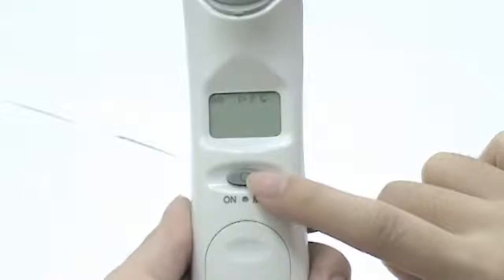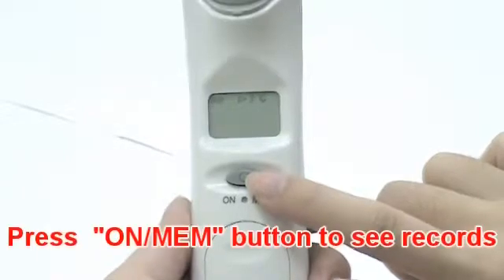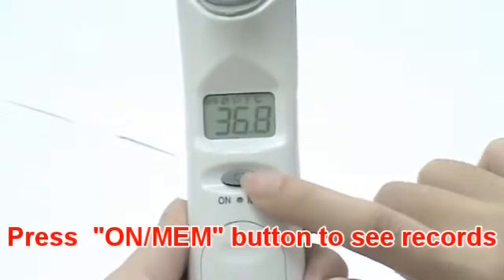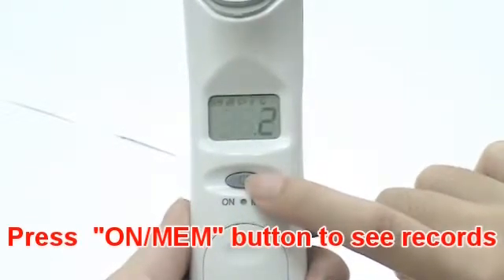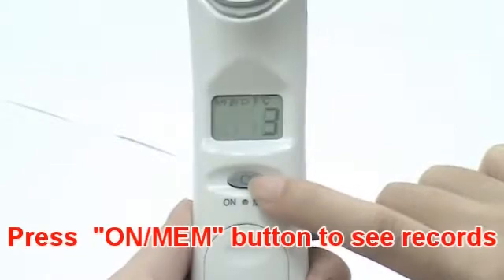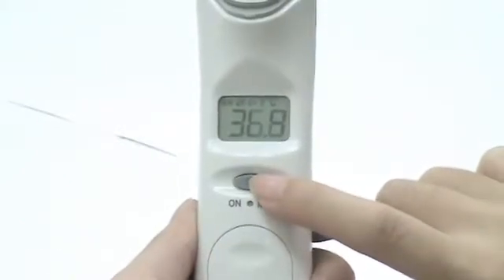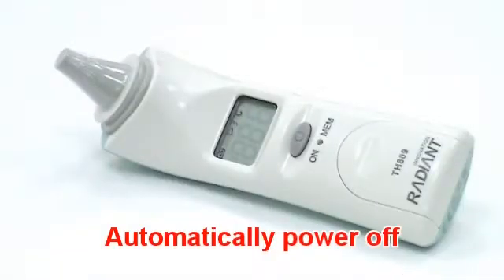This thermometer only records the last measurement data before power off. Press the on memory button to see the temperature records. The device will automatically shut down after one minute pending.